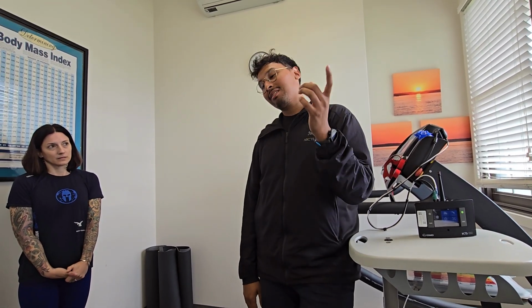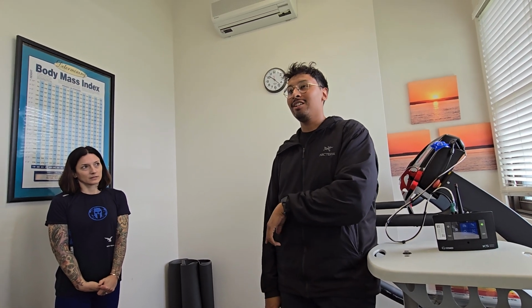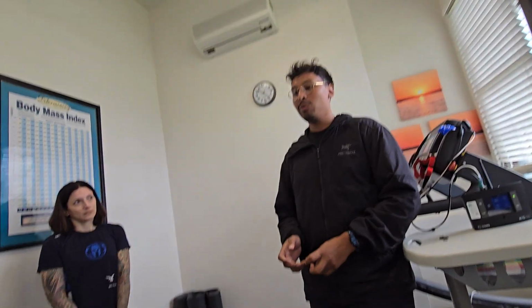But you use the mixing chamber on, I want to say, really elite level runners. Anyone with a respiratory frequency that's going to be higher than 60 for minutes at a time, that's who you would want to use the mixing chamber on. The last group I went to that had consistent runners in mixing chambers was at Brooks, because they were doing marathon runners. But other than that, most of the general population, even at max, is barely hitting those 60s. So that's when you use the two different modes.